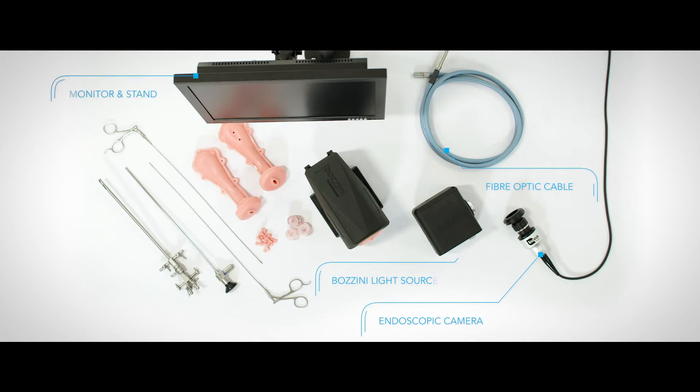It also comes with a 15-inch monitor and monitor stand, as well as two hysteroscopic instruments: biopsy forceps and hysteroscopic scissors.